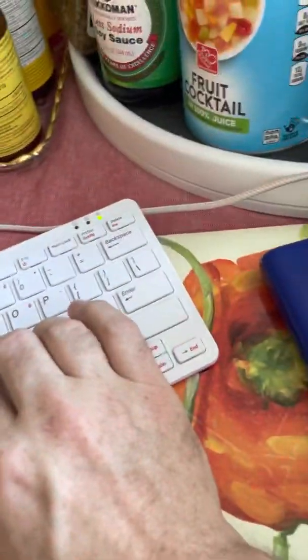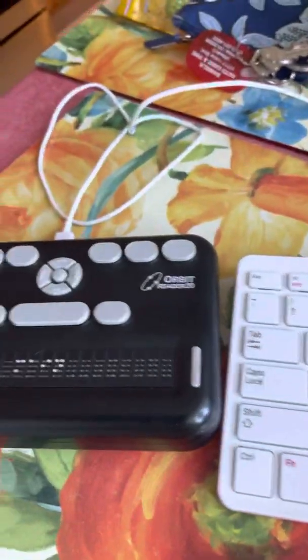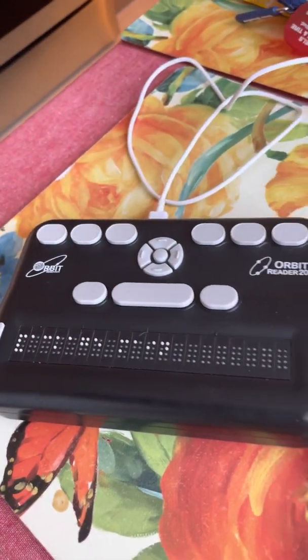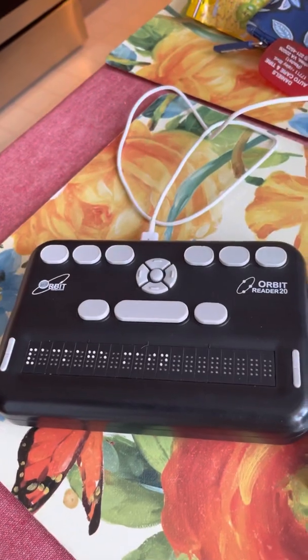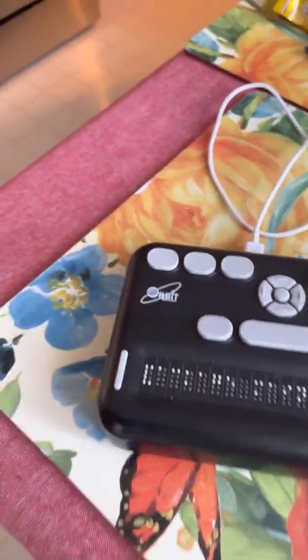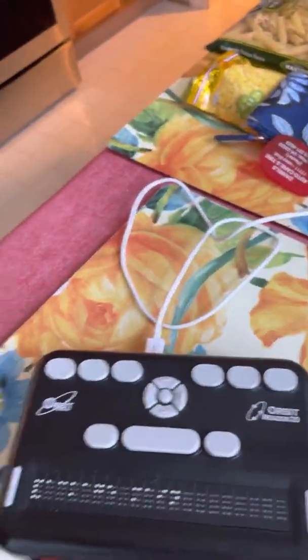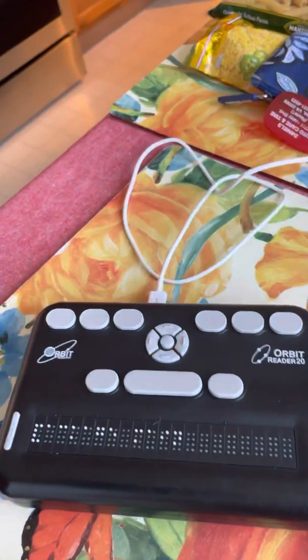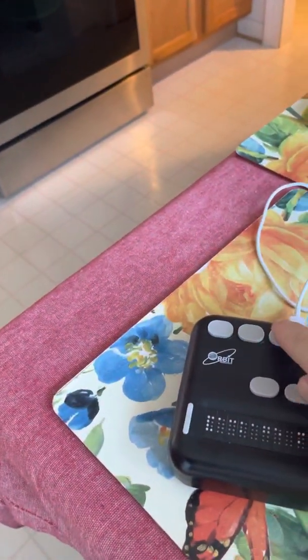So when you're using braille, it's pretty common to use a QWERTY keyboard in combination with it. But I did actually figure out how to use Vim with just this, because some people, their entire laptop is just this terminal, and they build a Windows system into it, and it's got Wi-Fi, and it's even got a web browser and everything, like the actual Firefox, but it's just set up without a screen. But anyways, I'm going to get out of Vim.